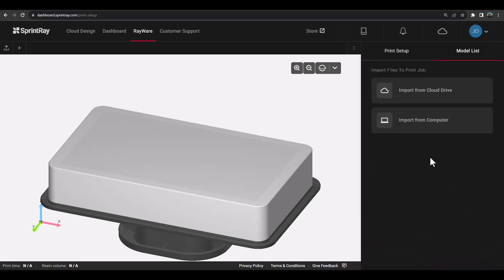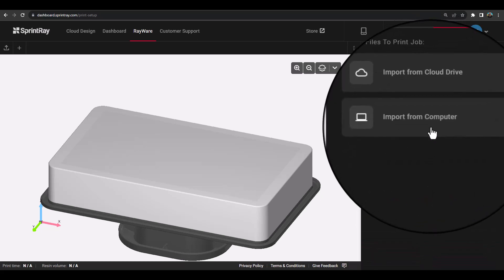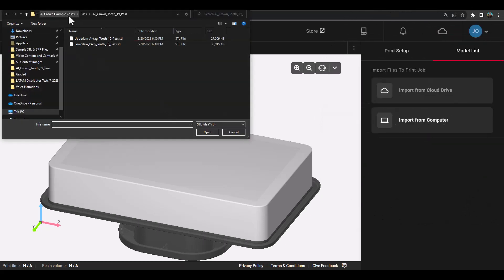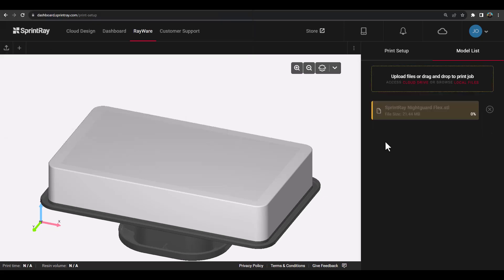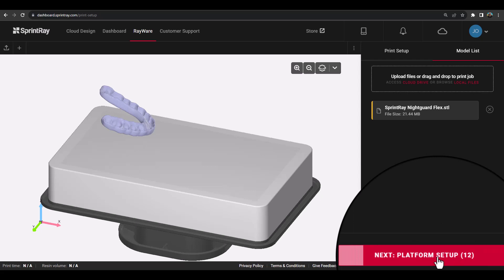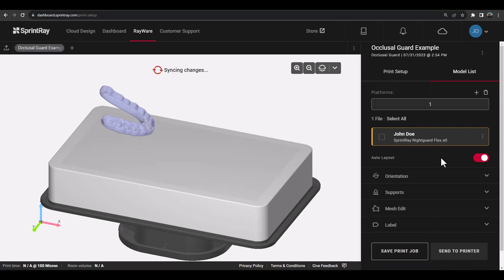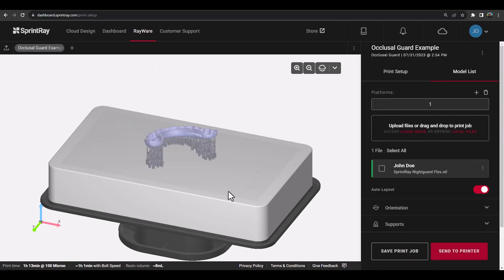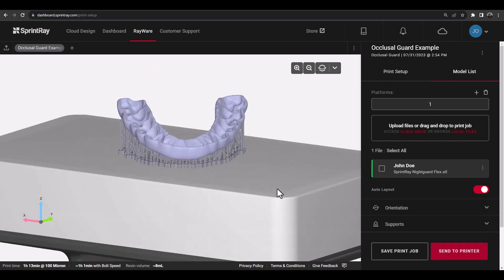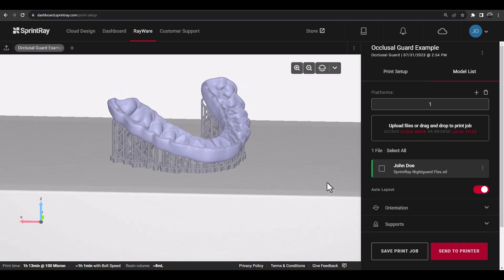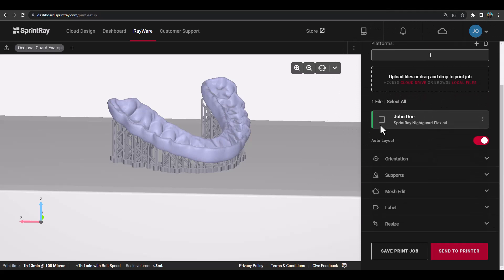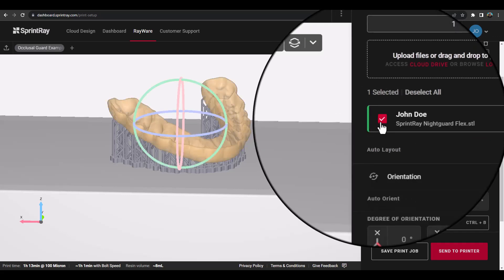Once ready, click the Upload Files button and choose the location for your STL files, whether they're from direct integration with Cloud Drive or uploaded directly from your computer. In this example, we will be using a completed occlusal guard design. Once the upload to cloud servers is complete, Rayware Cloud will then use its intelligent automations to automatically detect the key surfaces on the model, such as the intaglio, and orient the model in the ideal orientation and with the ideal support structures for the best reliability and success when printing.